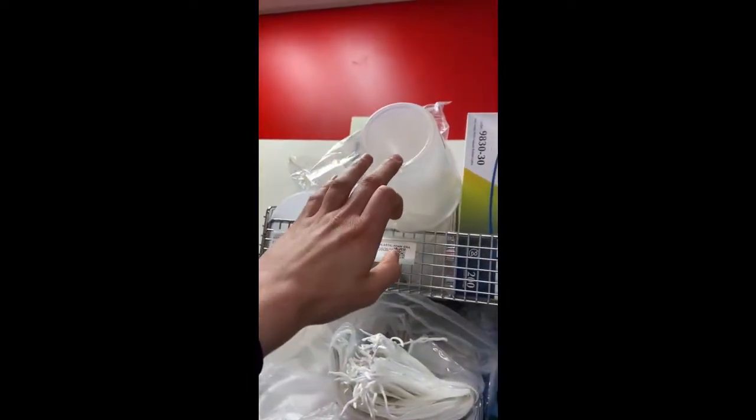So in this video, I'm going to be taking you through my storage room, and I'm going to show you what we use and what most hospitals have. Okay, so it's like a tour through the storage room. So here we go. Okay, so here are just regular pitchers for water.